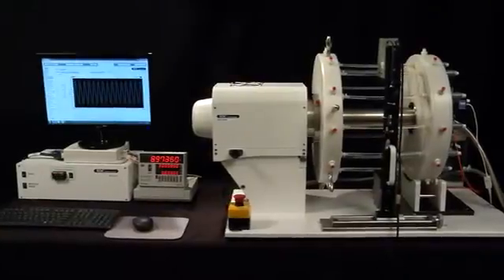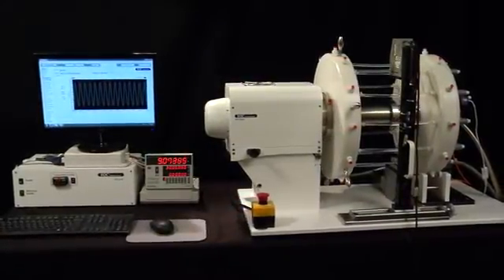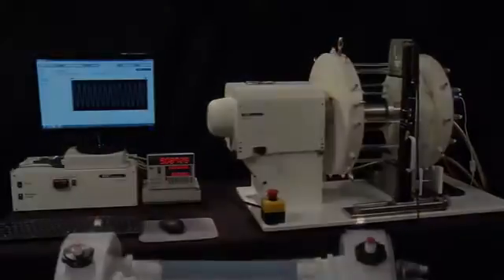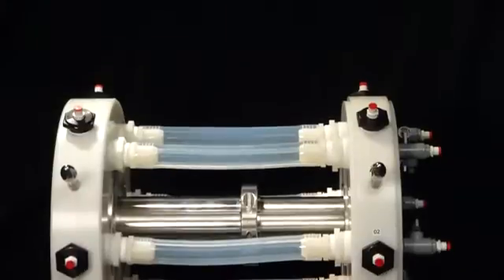The patented RDTL-0200 Radial Durability Tester from BDC is designed to test stents, stent grafts, transcatheter heart valve frames, as well as other endovascular technologies of all sizes.